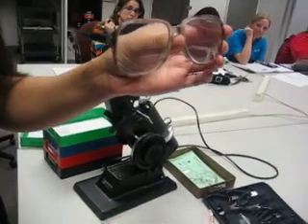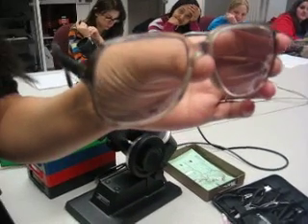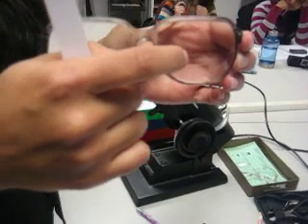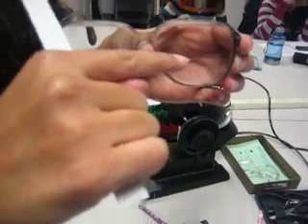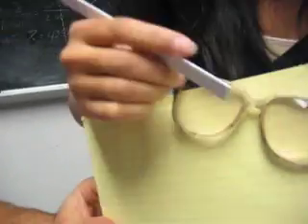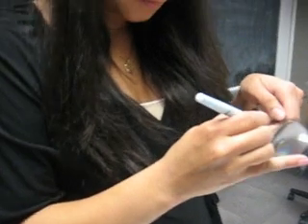So, the way a trifocal is read, do you need a background? The first number is going to be the depth of the intermediate, from the top here to the top here. Do you need something behind you? Yeah, this yellow would be actually pretty good. Perfect. So from here, how about we draw on it? I'm going to draw on it. There we go.